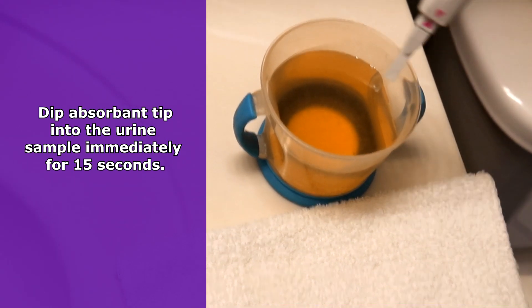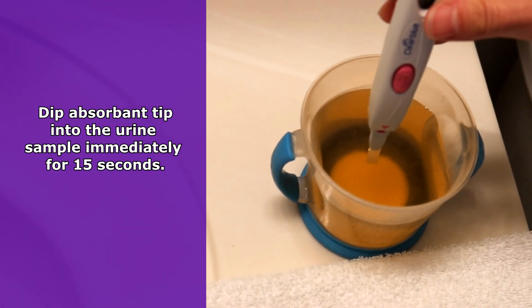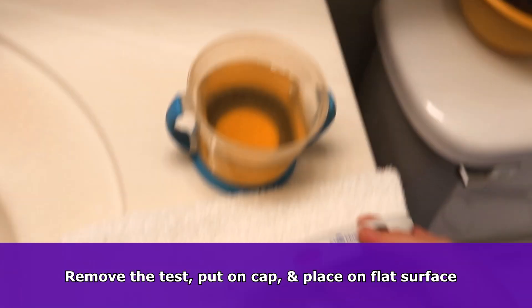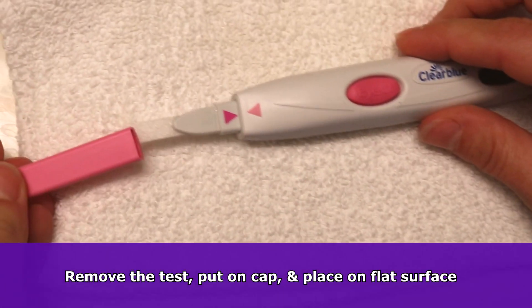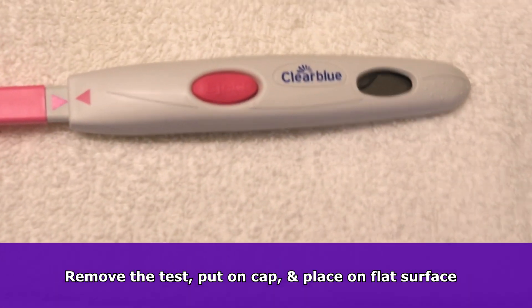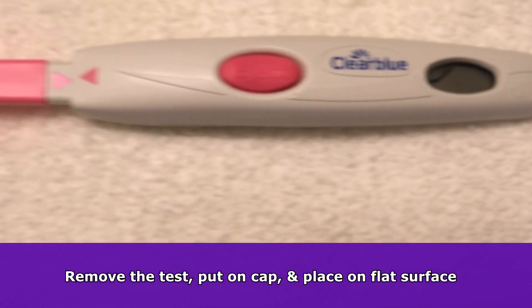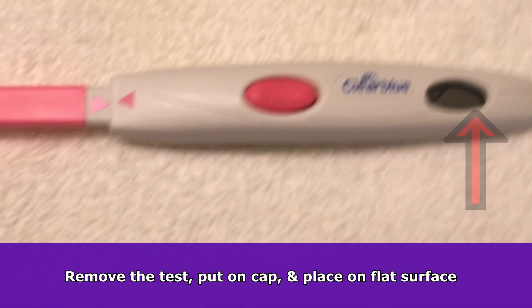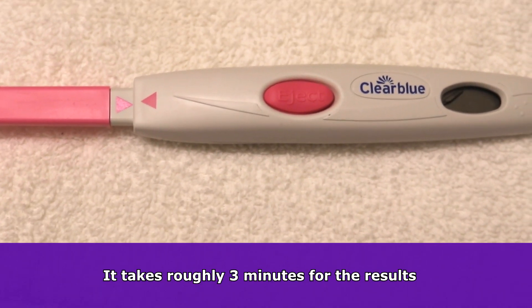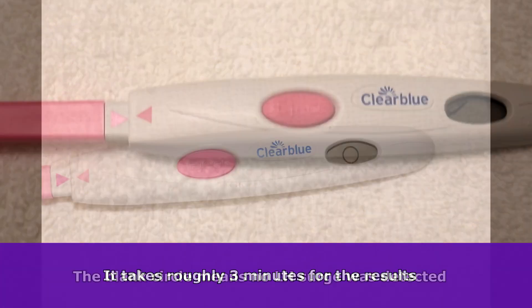Now you're ready to dip it into your urine sample immediately. Dip the absorbent tip only into the urine for 15 seconds. Then remove the test from the urine, put the cap back on, and place it on a flat surface as you await the results. The display will flash as it's reading the results just to let you know everything is working, and after about three minutes the test will be complete.